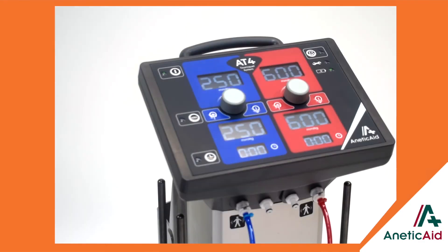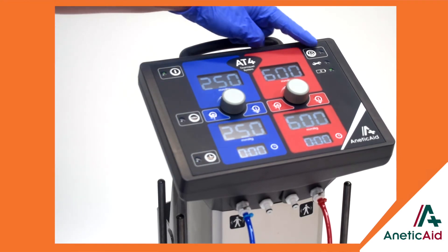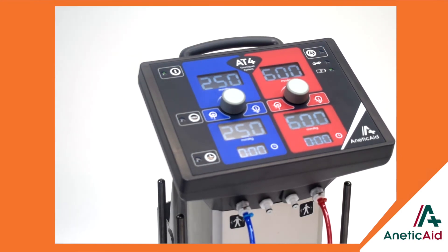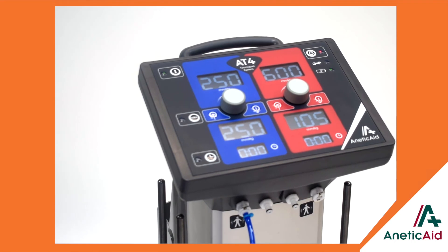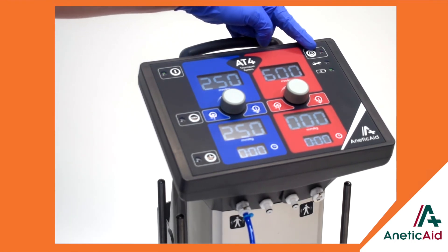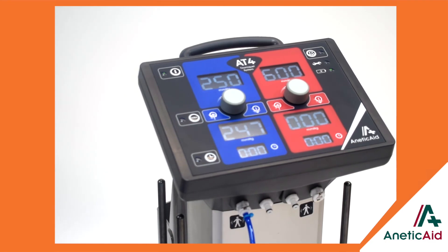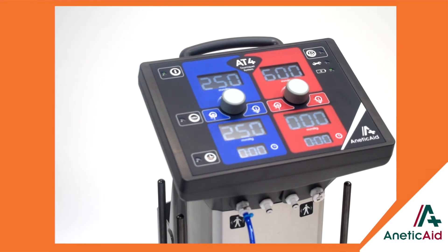There are positive feel push buttons for on and off, the IVRA guidance feature, elapsed timer interval selection, audible warning mute, and inflating and deflating a cuff. The AT4's large internal air reservoir offers rapid cuff inflation time, and means that the internal pump only needs to run for a short period, offering an unobtrusive and near silent performance throughout any procedure.